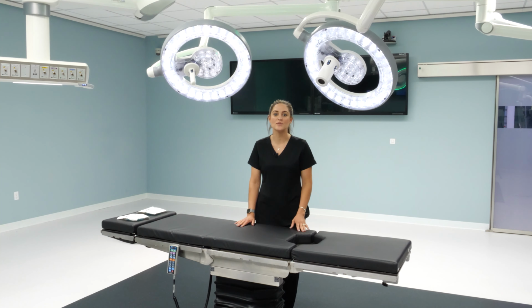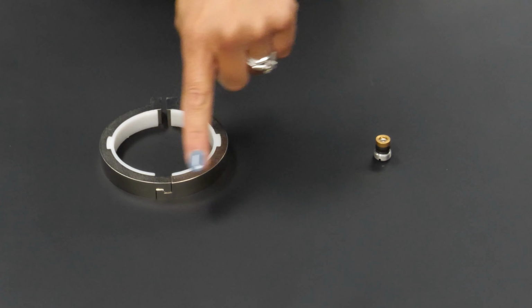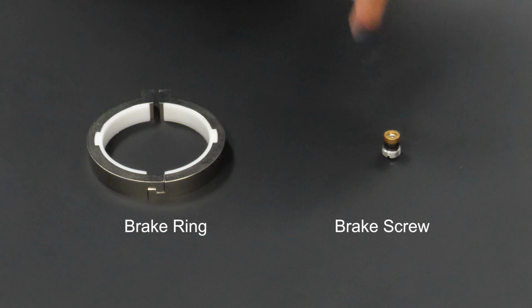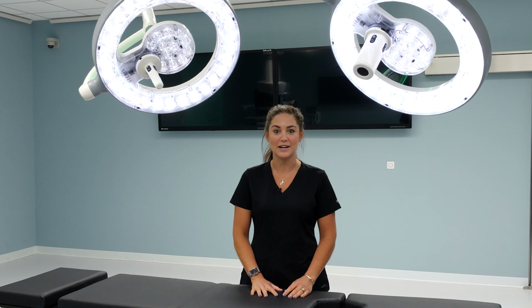suspension system comes with a patented brake ring instead of a brake screw. As you can see here, the surface coverage area is significantly more on the brake ring versus the brake screw. Additionally, with our patented brake ring, Steris has found that no additional adjustments have been needed for 5+ years after initial install.